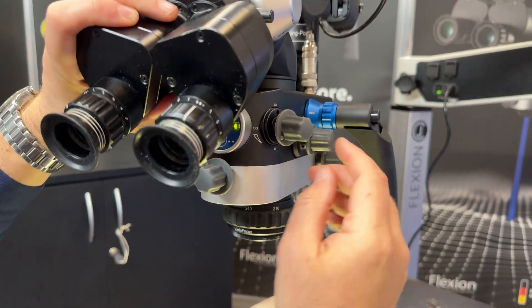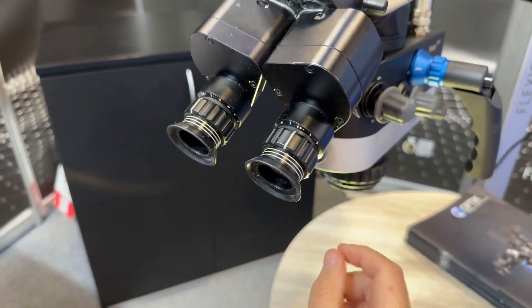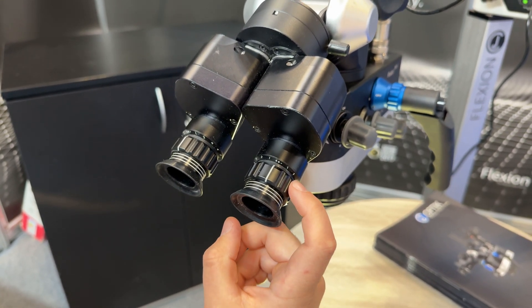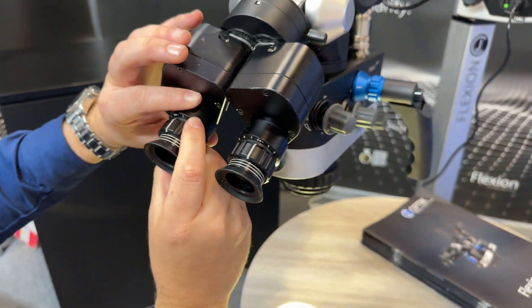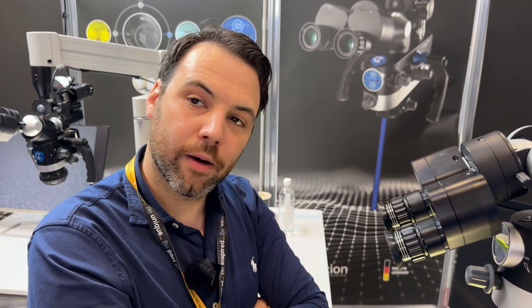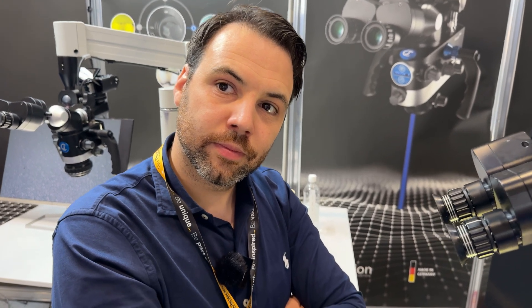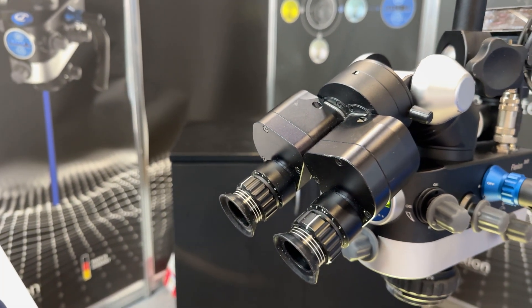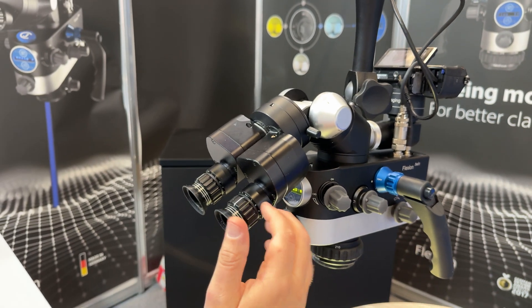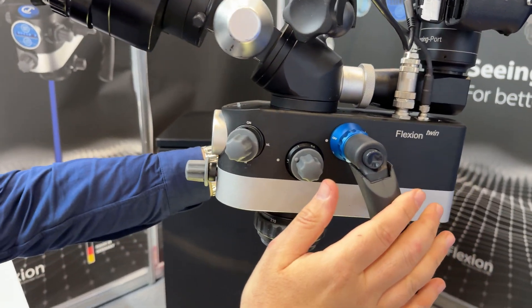The same applies to the top of the binocular. On most modern microscopes if you wear glasses - do you wear your glasses when using the scope? I don't wear my glasses - I shut the dials after. But when I haven't touched the microscope for a while I'll look and it looks really weird and bizarre, then I realise I haven't set it correctly. As soon as you've set that to your prescription it's perfect. Take a picture of the settings so you don't forget.